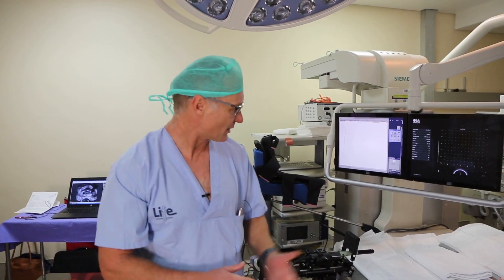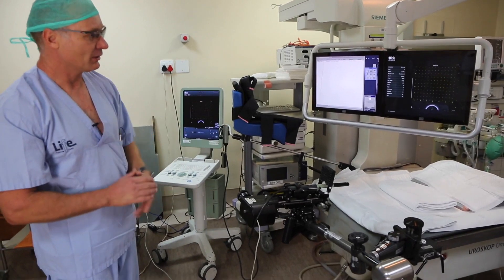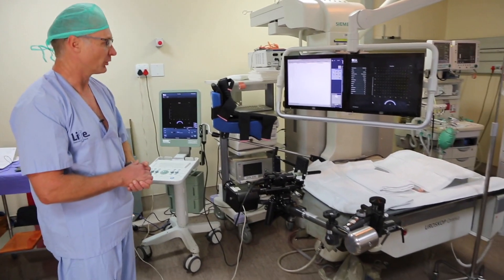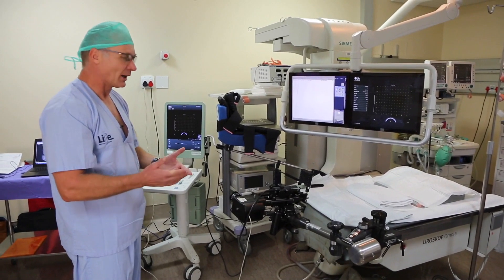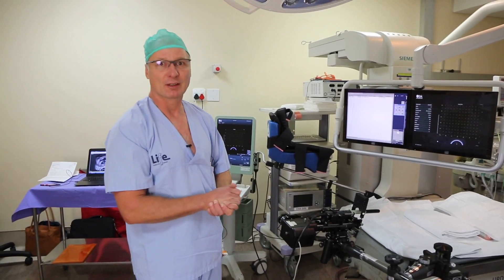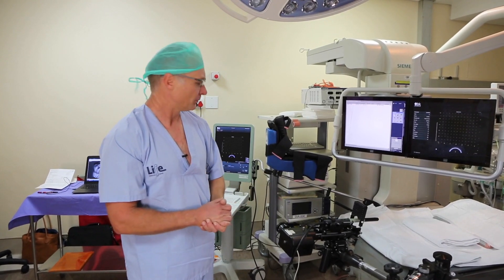The setup basically looks like this — all that is missing is a patient and then we could get going with the procedure itself. The basic idea is that we need to get radioactive seeds into the prostate in a specific area so that we cover the prostate without burning or damaging normal tissues.